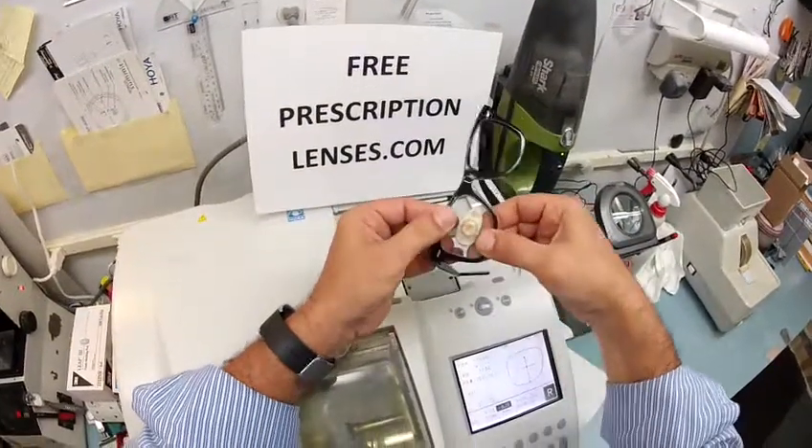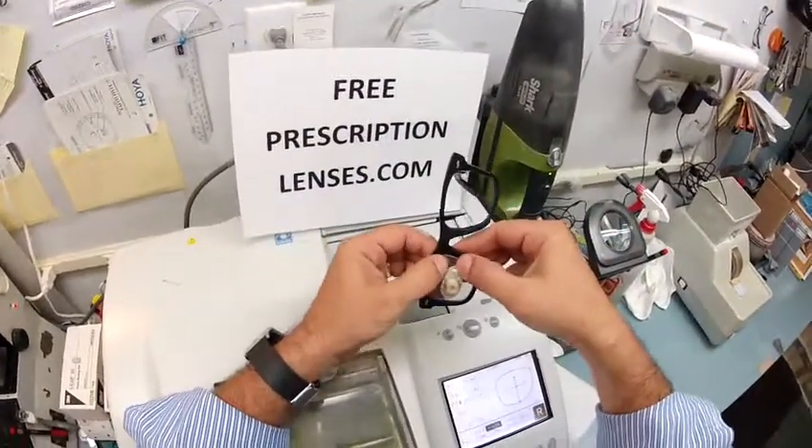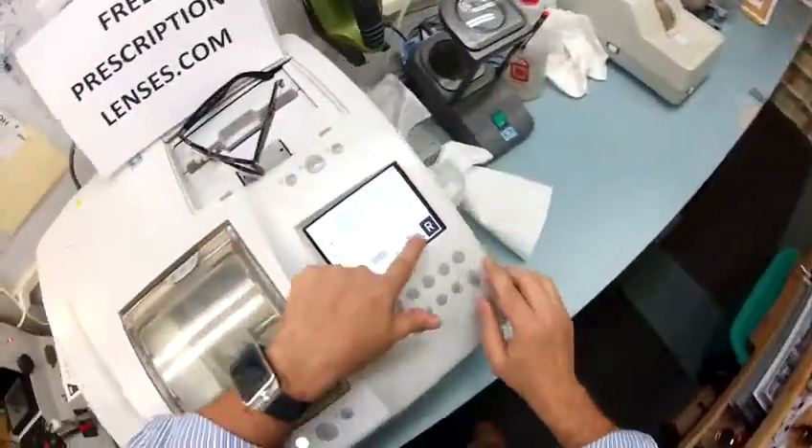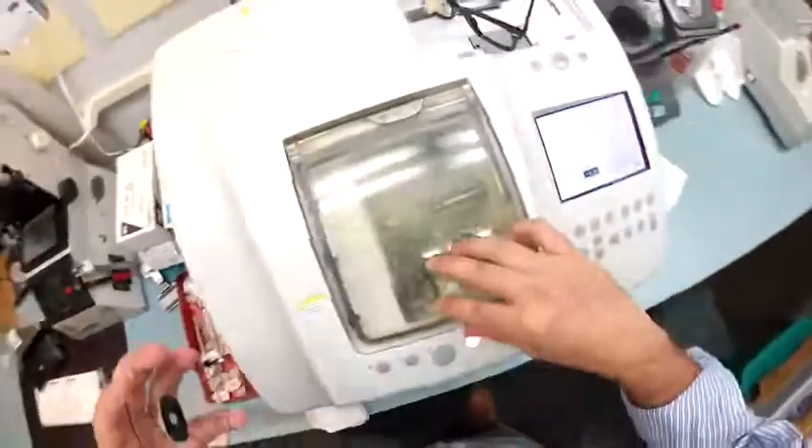To see if this fits, I'm going to tuck it in at the outer corner closest to me. Then, using my thumbs, I press in and it snaps in perfectly. I'm going to flip this over to the left and cut your left lens.